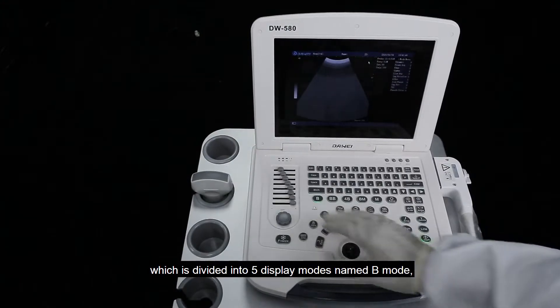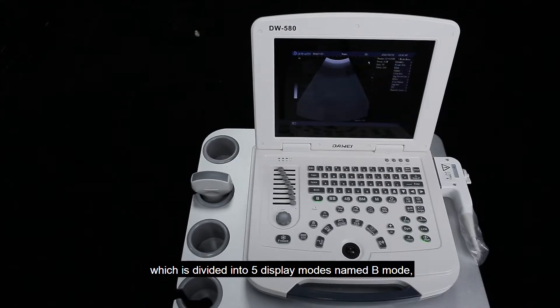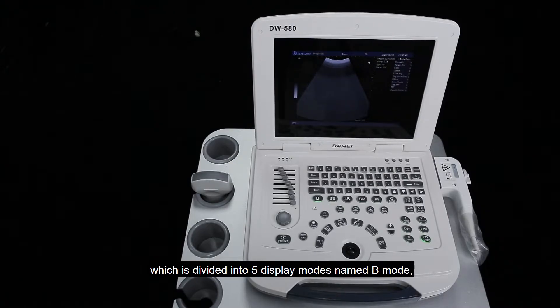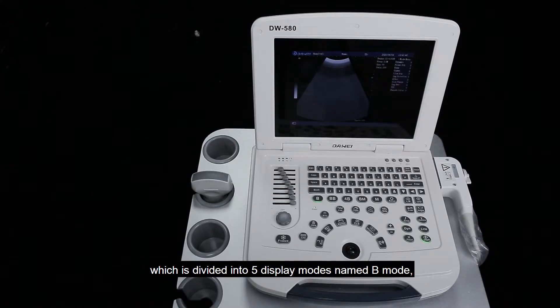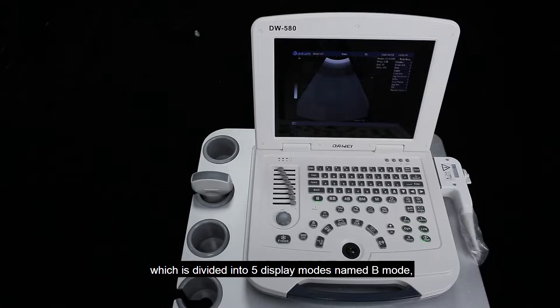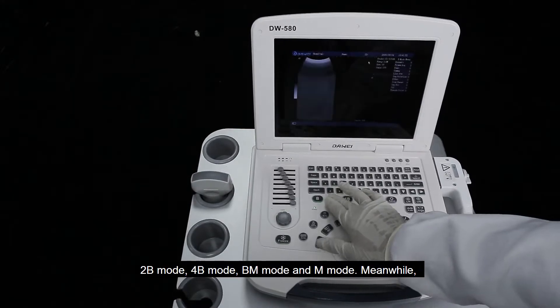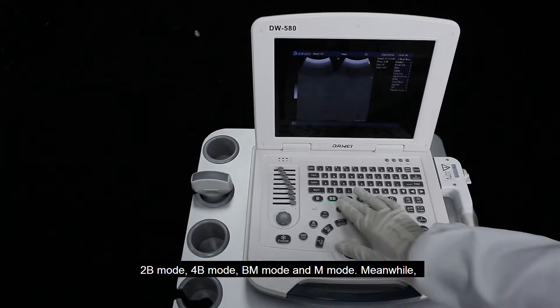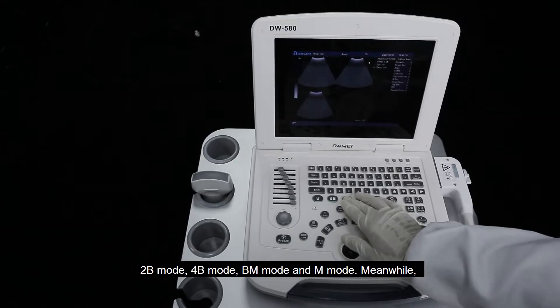The display mode area is divided into 5 display modes: B mode, 2B mode, 4B mode, BM mode, and M mode.